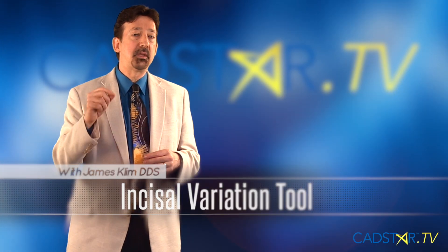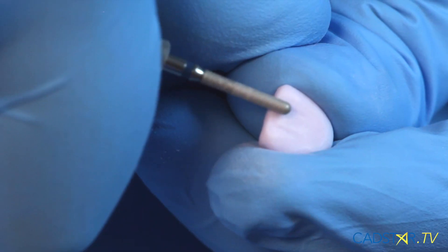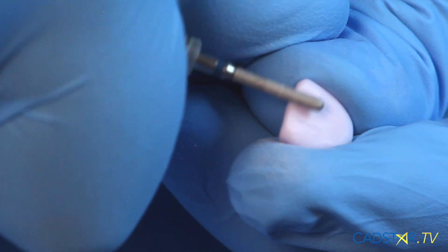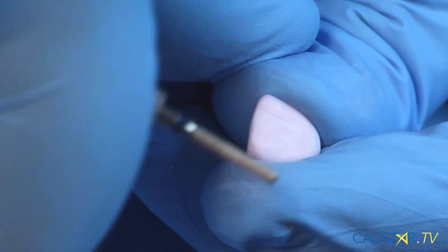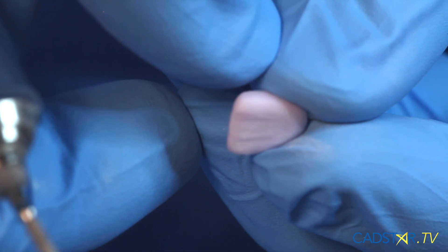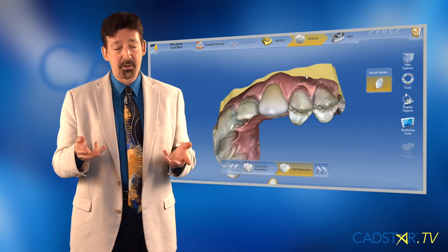I've really seen the difference in my anterior cases with the bar being raised. I've enjoyed grinding in what we call our labial contouring — those are primary, secondary, and tertiary contouring. The primary contouring is the major deal of those three. The software now will give you a variety of contours that you can scroll into your labial surface, and you get a really great result.